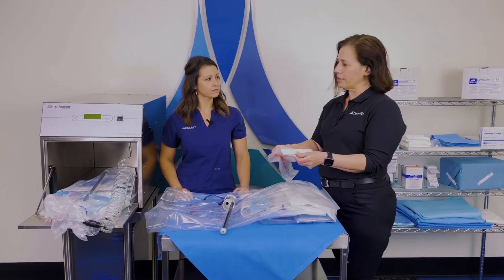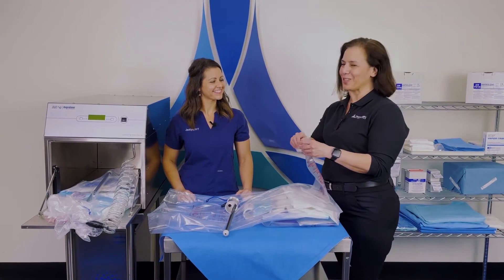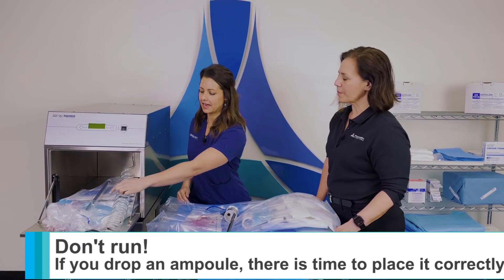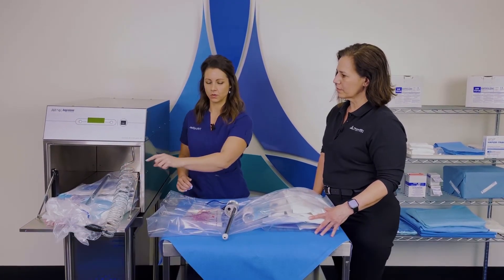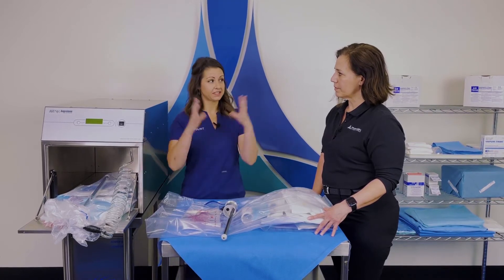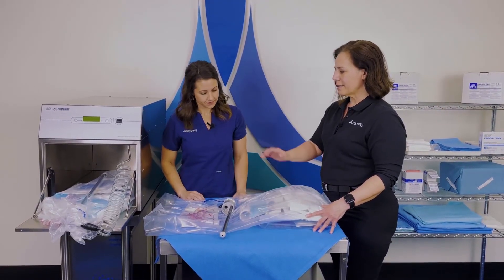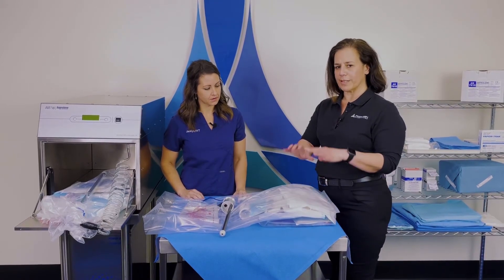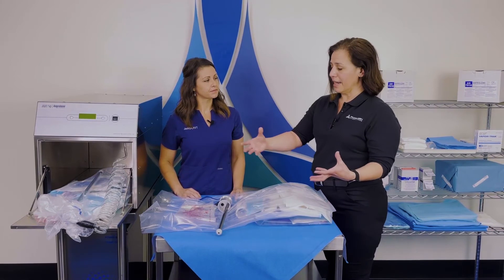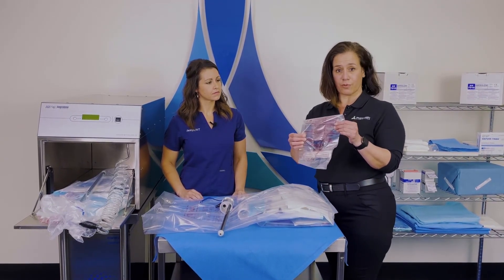It takes about 11 minutes — and you did a video on what to do if you drop one of these little ampules. You see this bag expand, so after this purge you break the ampule, then this bag will expand because of the gas. Correct — it's currently in a liquid form, and once that ampule is broken it turns into a gas immediately.